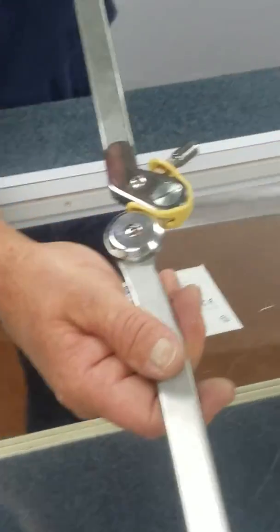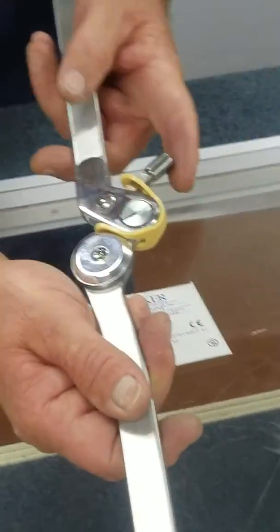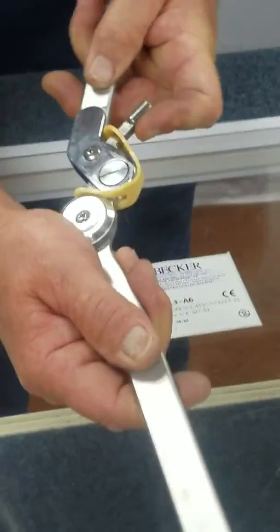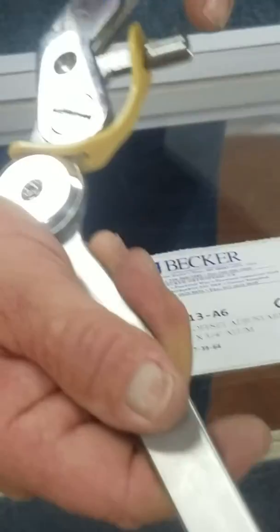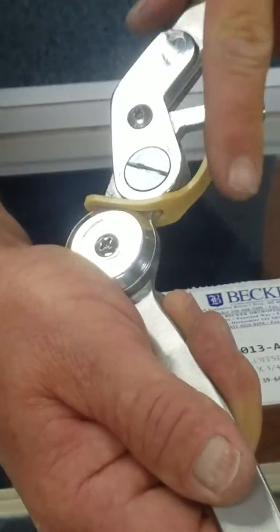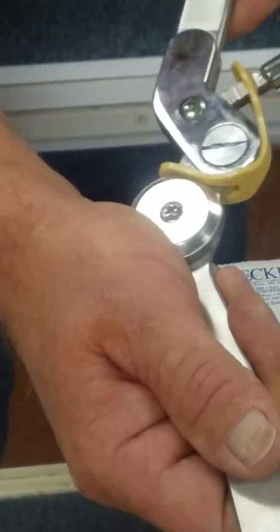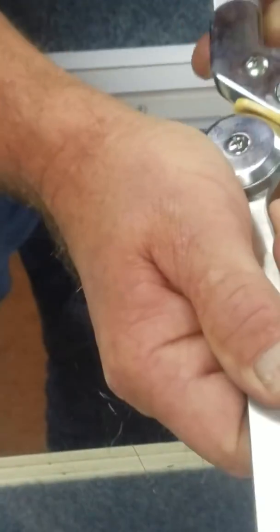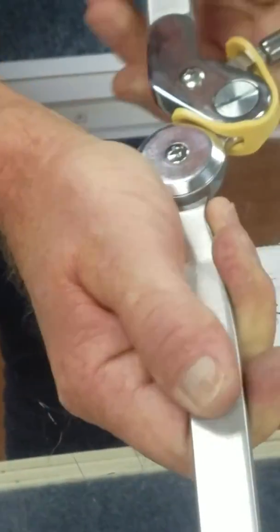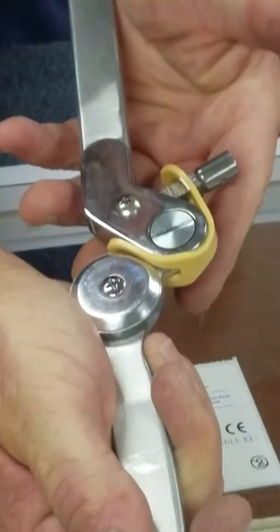The 1013 is posterior offset—it's the newest of the line. It's a bail, and it also has this urethane band for locking at full extension.